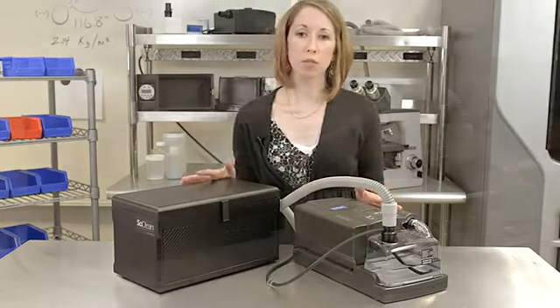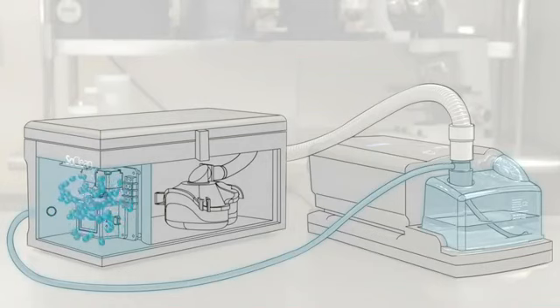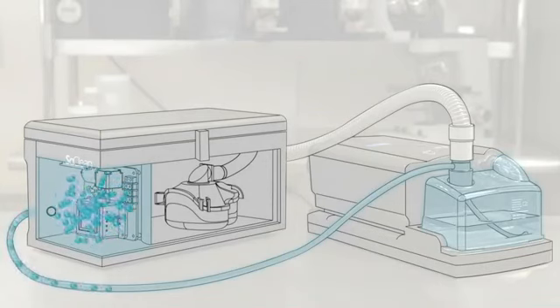At the preset time, the SoClean goes into action. First, the SoClean generates and pumps the activated oxygen through the supply tube and into your humidifier reservoir.